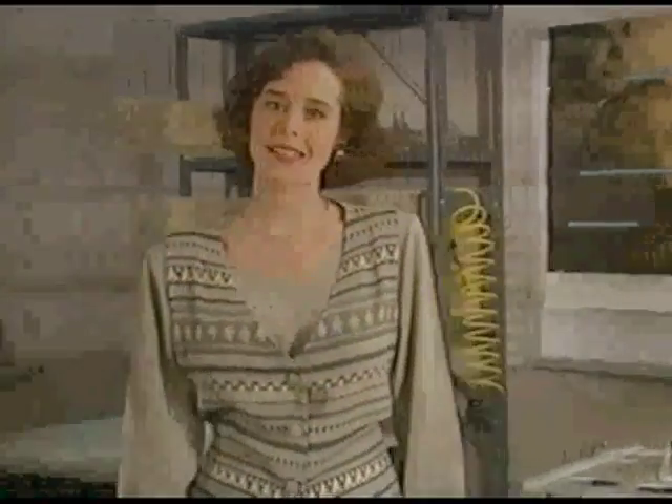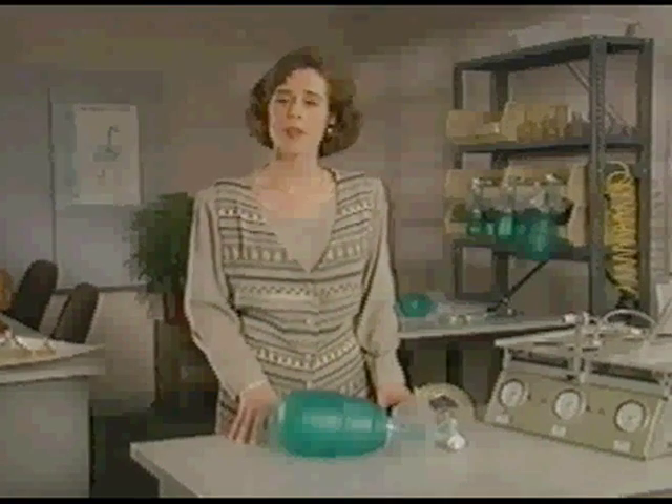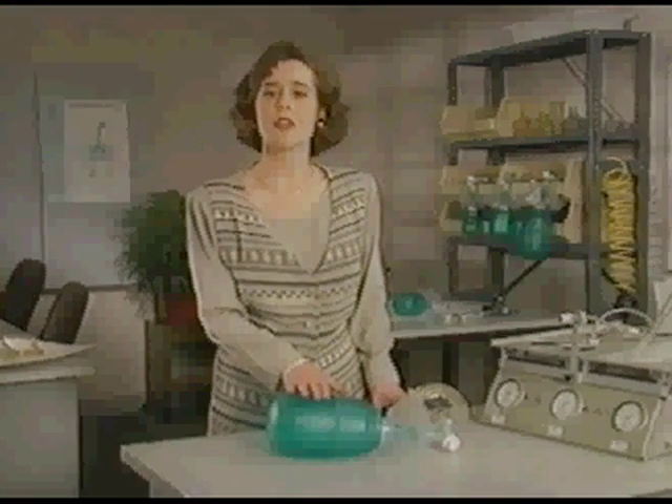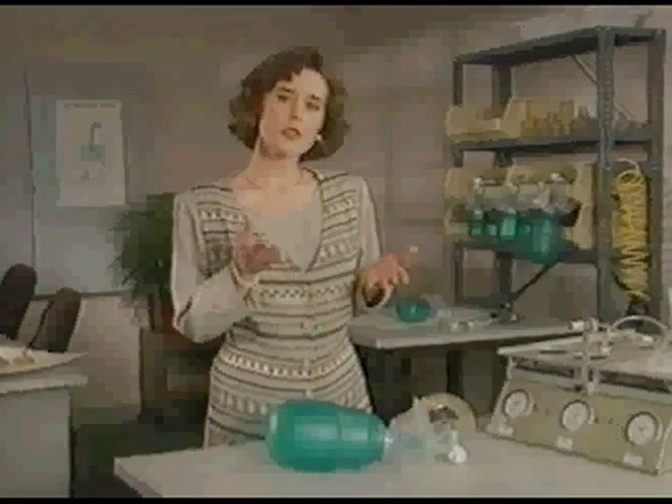Hello, I'm Suzette McClelland, and this is just some of the equipment used to develop and test BagEasy with a new design based on research and customer input. A great deal of engineering went into building this bag around needs and wants expressed by respiratory therapists, physicians, and nurses. I want you to understand why we developed BagEasy's innovative components. My associate Phil will show you how to put the bag to work.